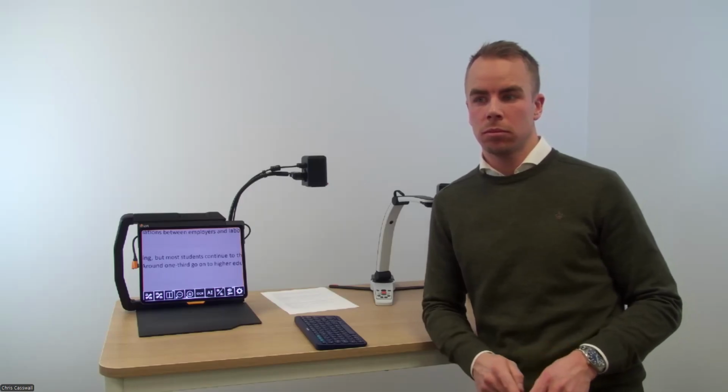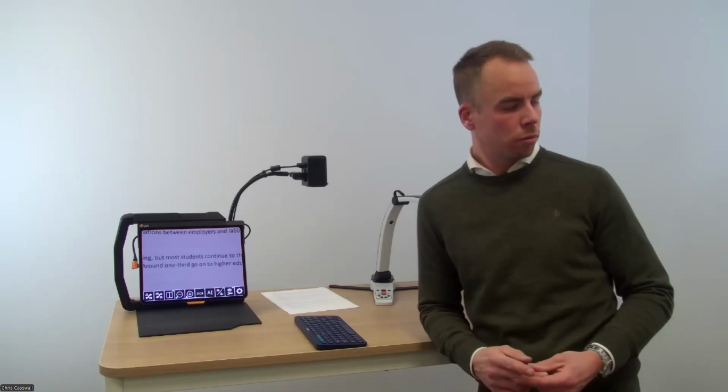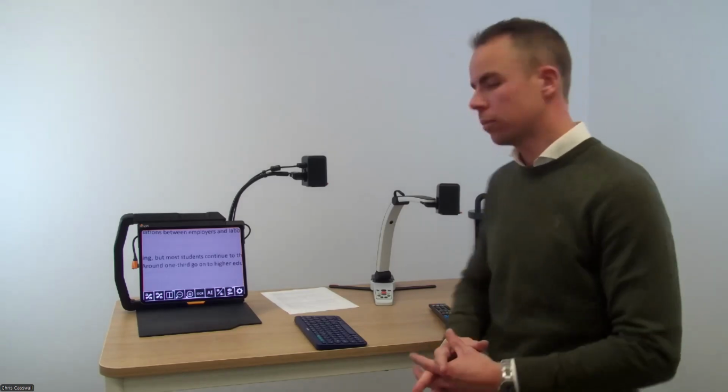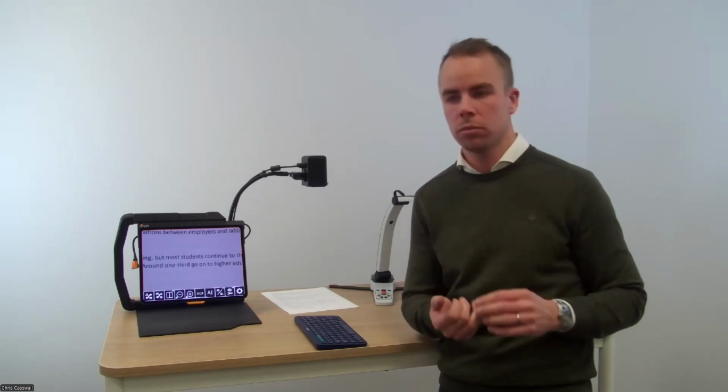We look at all of our software applications every year. We look at all of our pieces of hardware every year. And we have something, and I'm going to put it up on the screen in a minute, but it's feedback@lviamerica.com. We're going to get information from you guys about what you want for AI. Hey, it's great that you do this, but could it do this specifically? We have done a lot of updates with our MagniLink viewer software, probably more than I've seen with any of our softwares, to where we're not waiting every year to make updates. Of course, we're having to make things work as Apple changes with their iOS as well, but we want to hear from you. We really want to hear what you have to say.